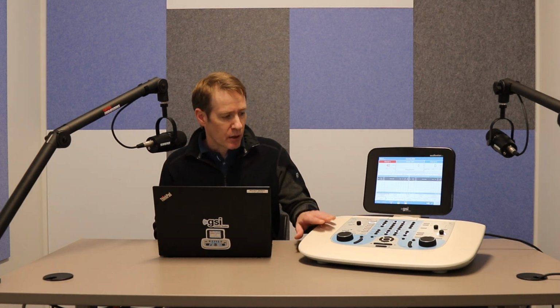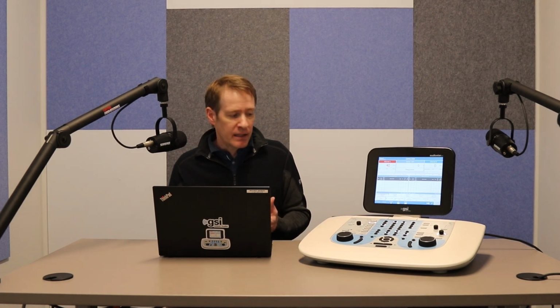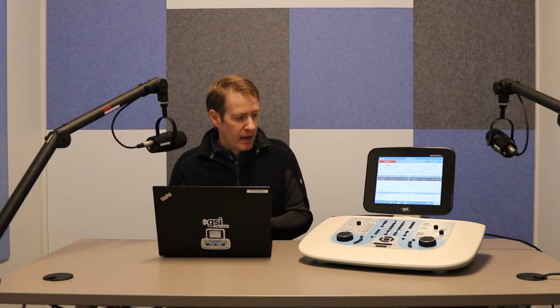So what you would do is you would go to the speech screen. You're going to click on the menu to get to the word navigation. And you're going to see expanded options. And one of them is going to be autoplay word limit. And what this is going to allow you to do is when you're using the autoplay, it's going to set the limit of words. Now with the config app, you can set as many words as you'd like, but on the device itself, you can set it for 10 words, for 25 words, or for 50 words. So fairly convenient for you to just set, depending on the speech test that you are going to do, how many words that you want to go through.